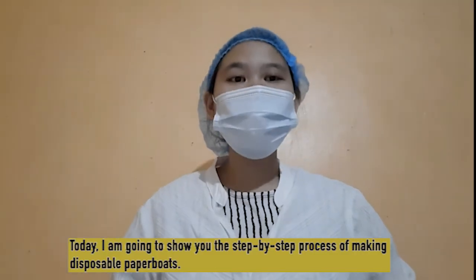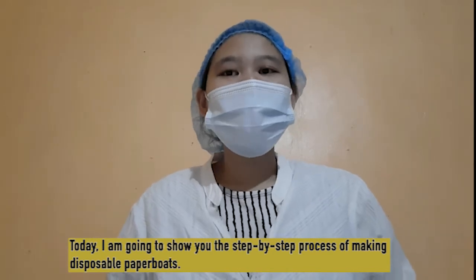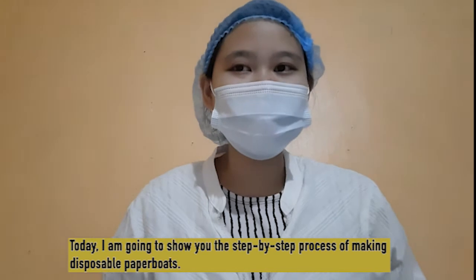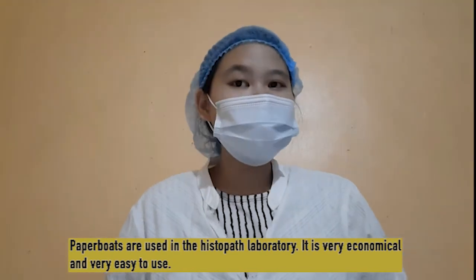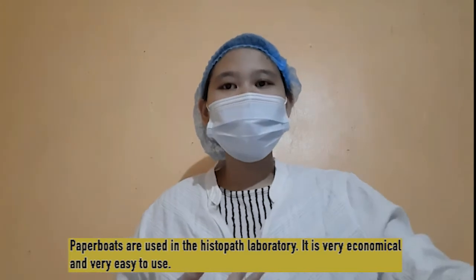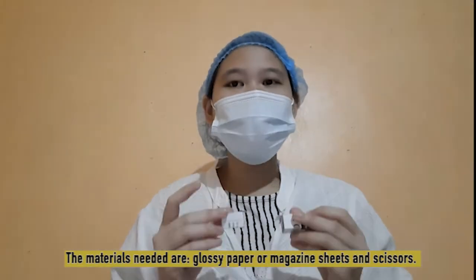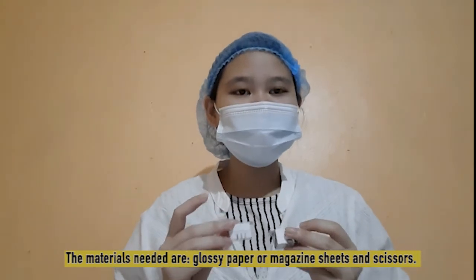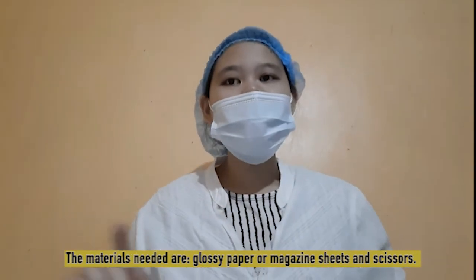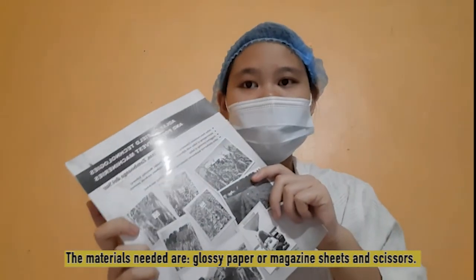Hello, so today I'm going to show you the step-by-step process of making disposable paper boats. Disposable boats are used in the histopath laboratory and are very economical and very easy to use. The materials needed in making paper boats are glossy paper or magazine sheets.